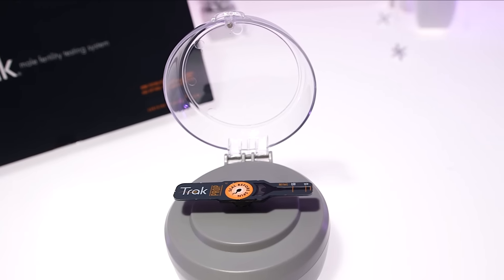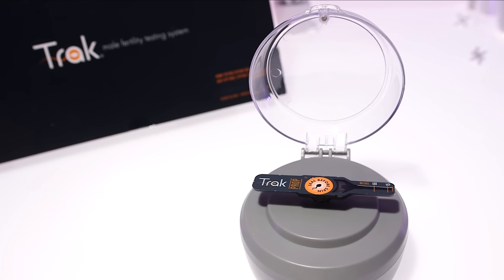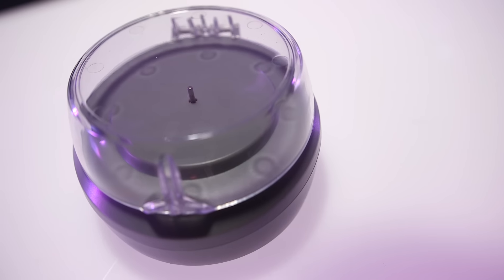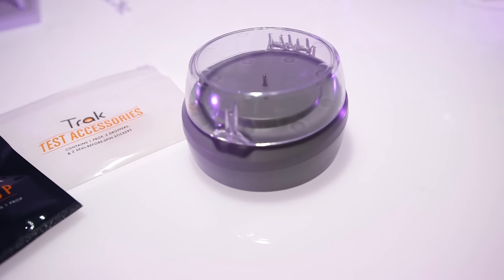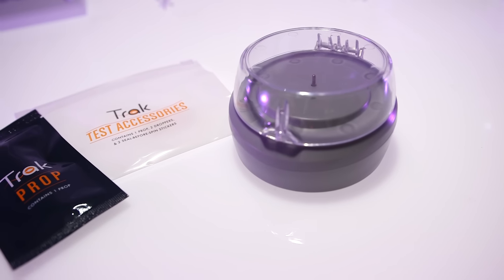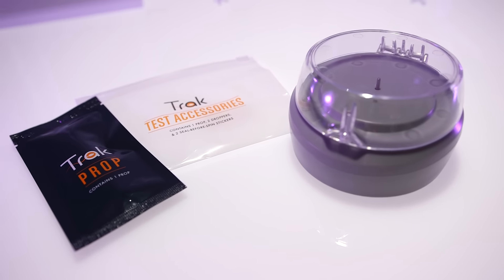Although we haven't tested it yet and can't verify if it's truly accurate, TRACK's differences from existing at-home sperm trackers and apparent benefits make it a potentially helpful tool for reproductively challenged couples and individuals.